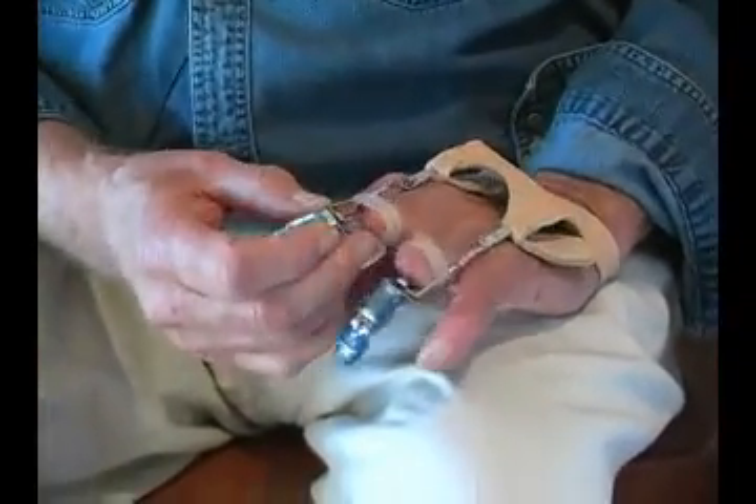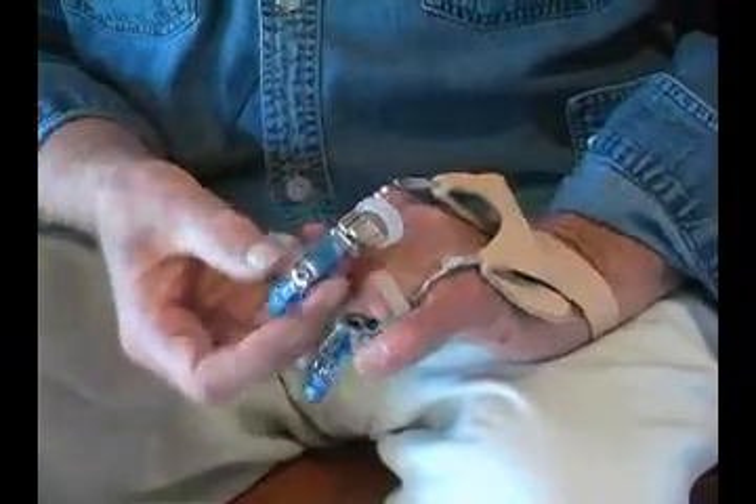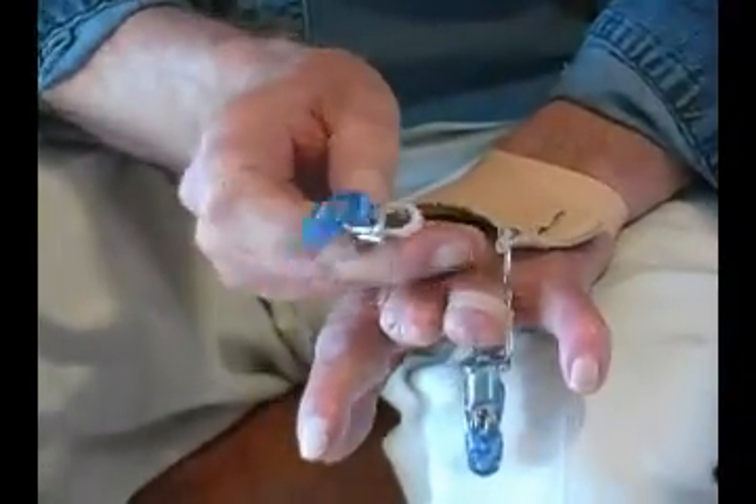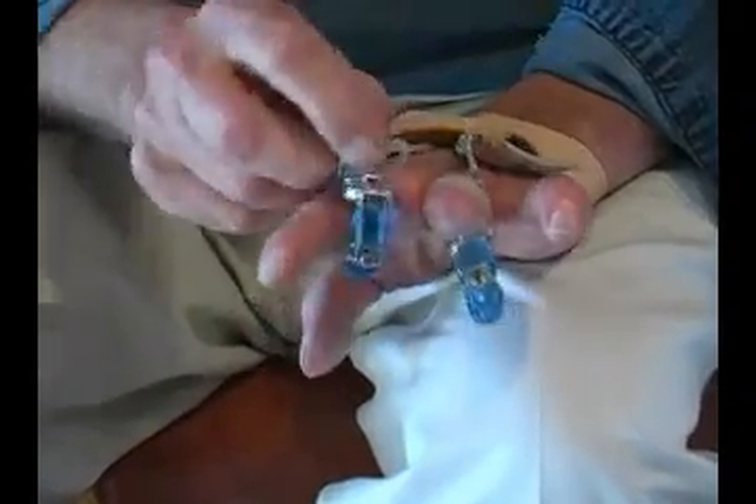They have a pan or an actuating lever. As you move the finger, this pan — push on it with your stub of your finger — it curls.